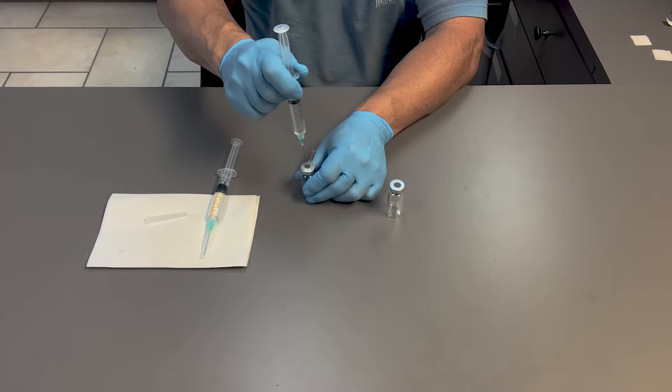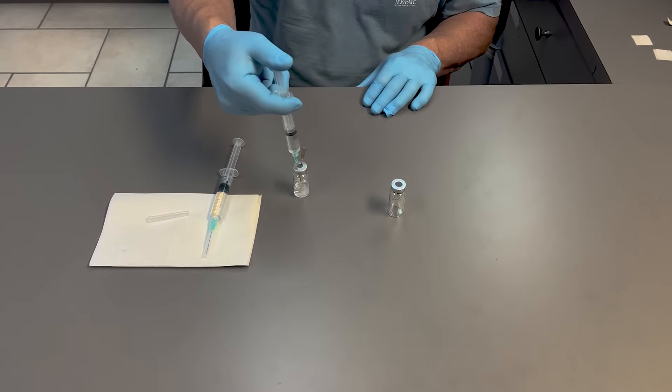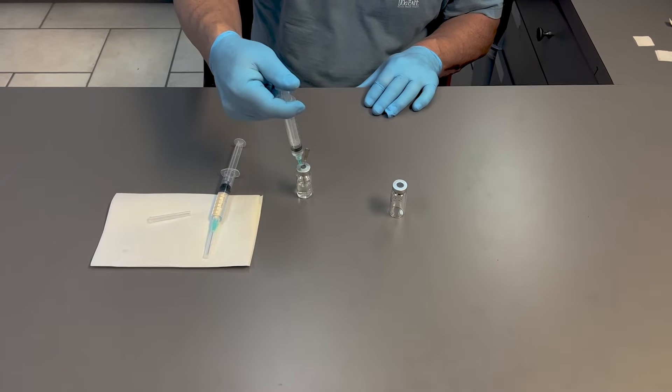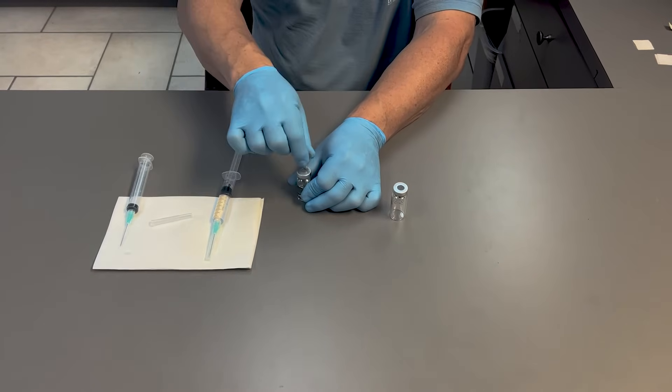Now you can see that it will easily fill because the air pressure that is in the vial is able to be released through the vent needle.